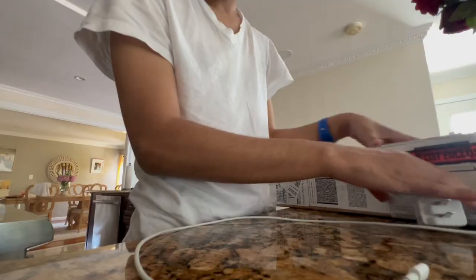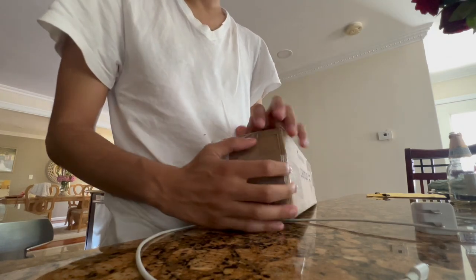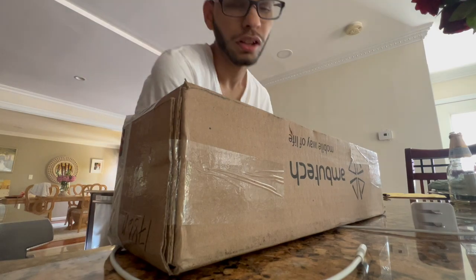I am completely attached to my cane. No, seriously, I am. Cue the terrible phone footage. My name is Chris, also known as Neon. I have received a very nice package from AmbuTech. I've been waiting for weeks.